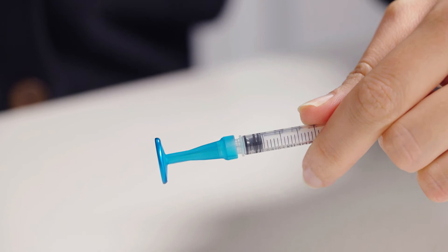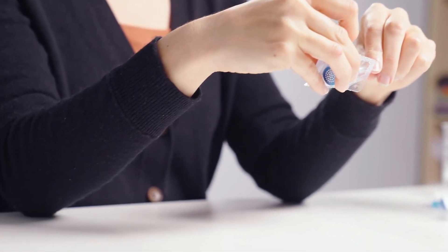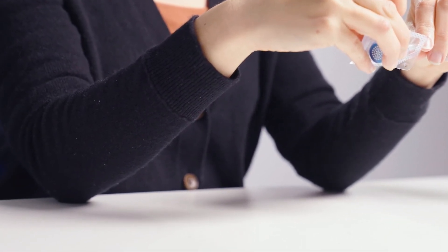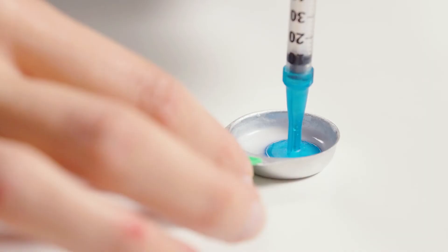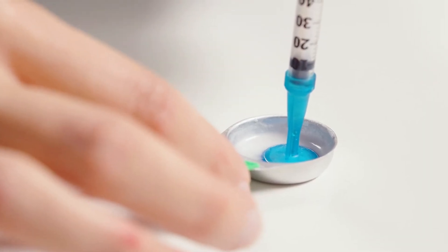To avoid damaging the needle against the inner wall of the filter, stabilize the movement by placing your elbows on the table or on your lap. For this demonstration, we are using 0.7ml of product in a SteriCup.